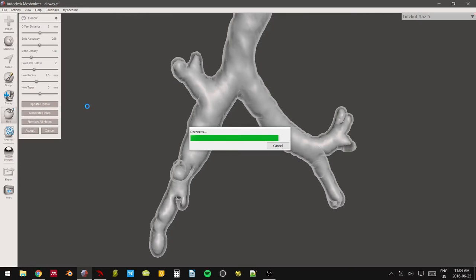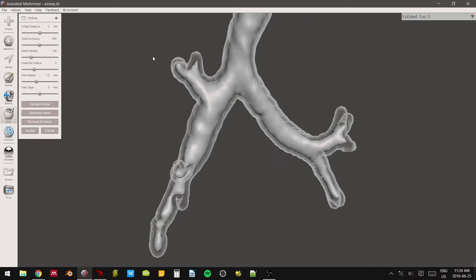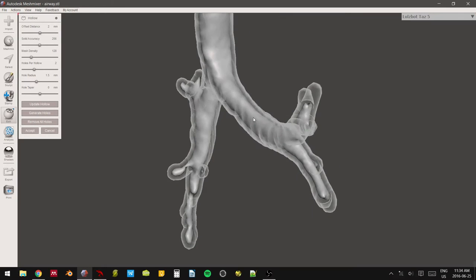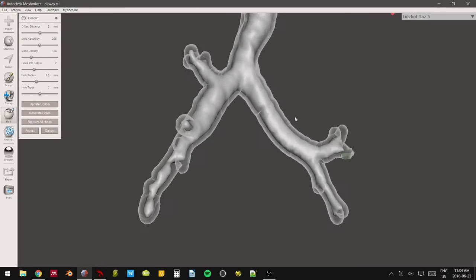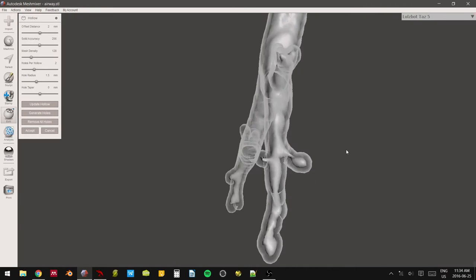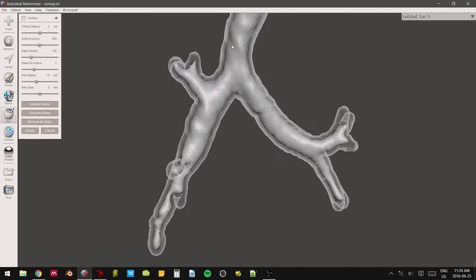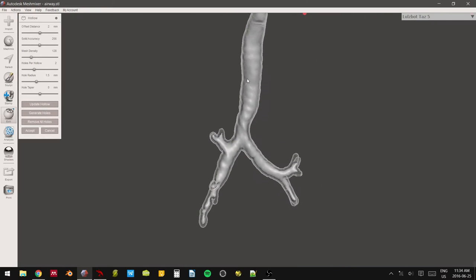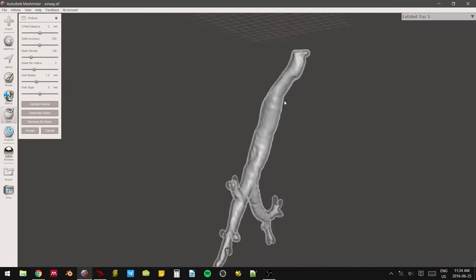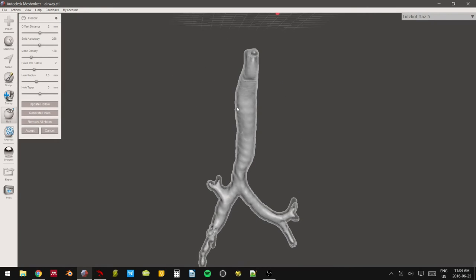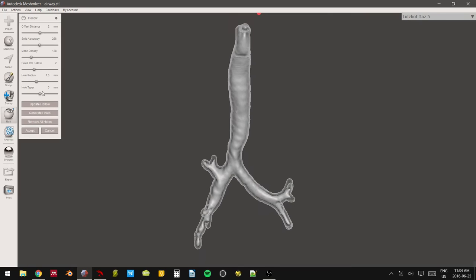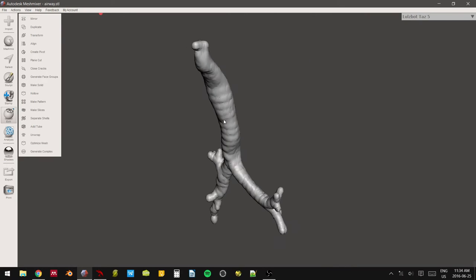And also by increasing the offset distance in this, like by increasing it, it's just going to be easy to print later because the object is thicker. So the printer won't struggle as much with getting those really tight geometries, which can be a pain. Okay, I'm pretty happy with that. So at two millimeters, we're going to hit accept. And now it's hollow.